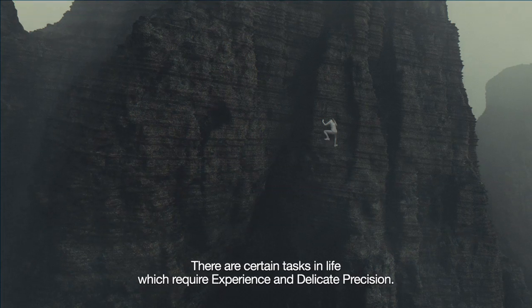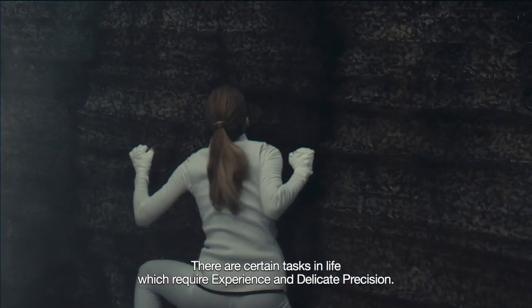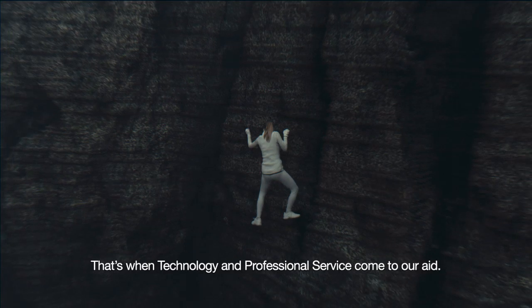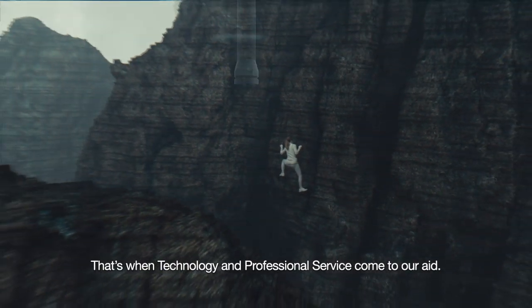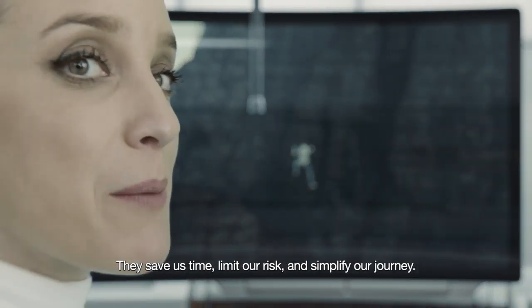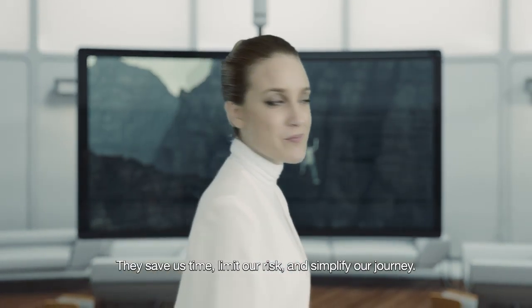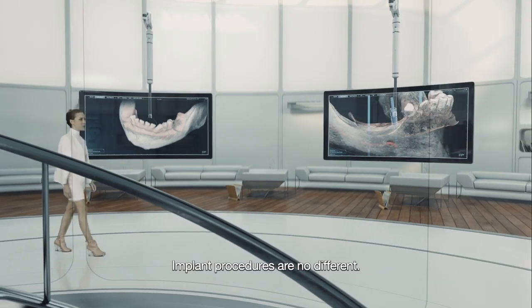There are certain tasks in life which require experience and delicate precision. That's when technology and professional service come to our aid. They save us time, limit the risk and simplify our journey. Implant procedures are no different.